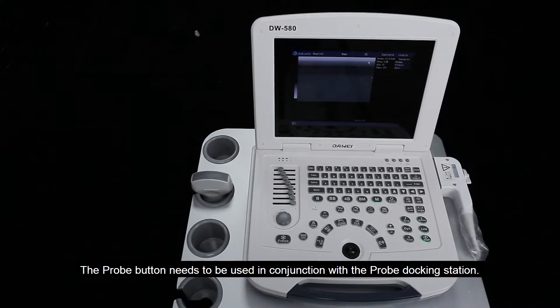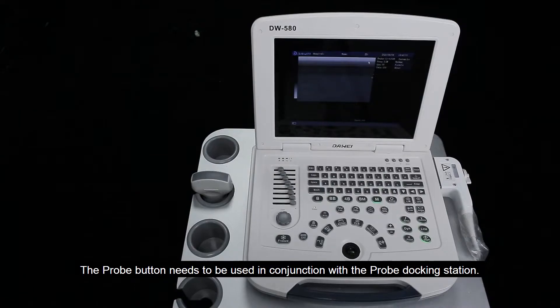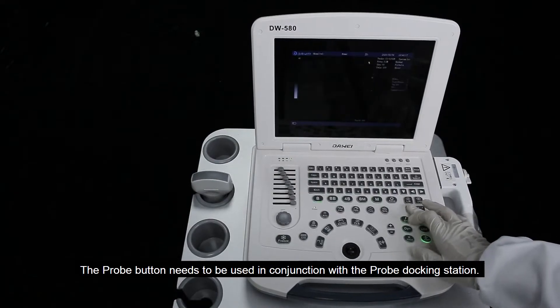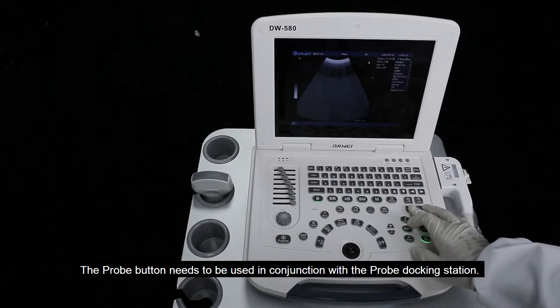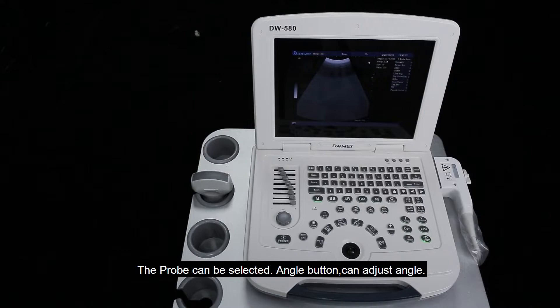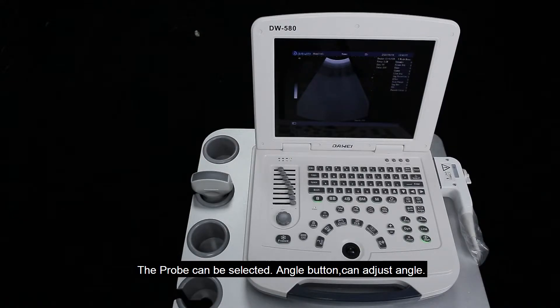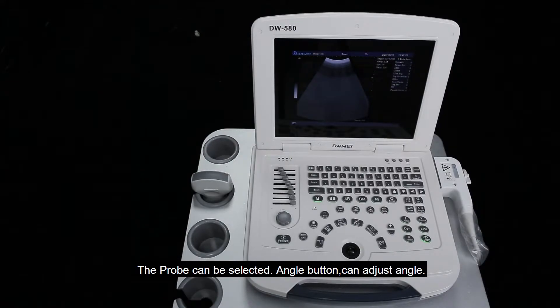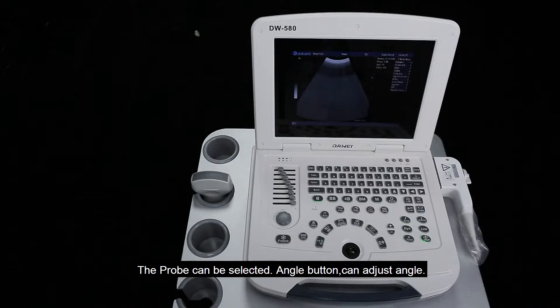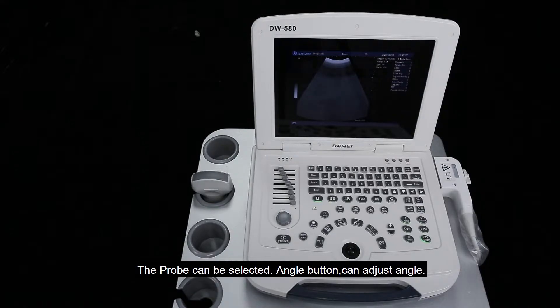The probe button needs to be used in conjunction with the probe docking station, and the probe can be selected. The angle button can adjust the angle.